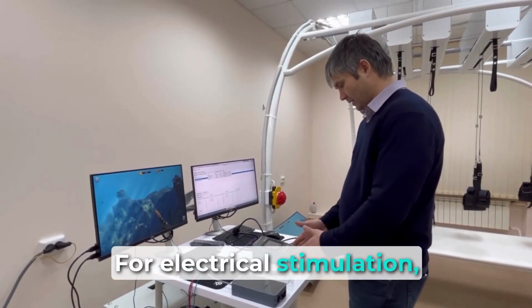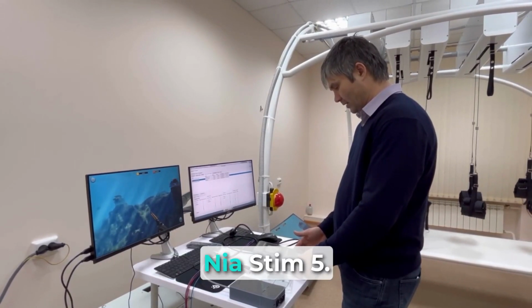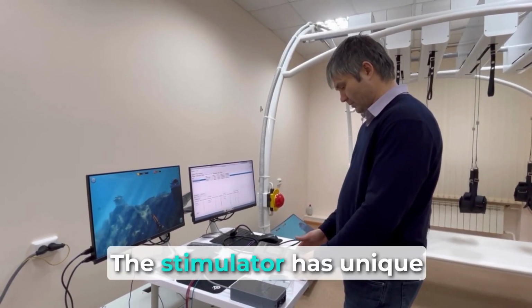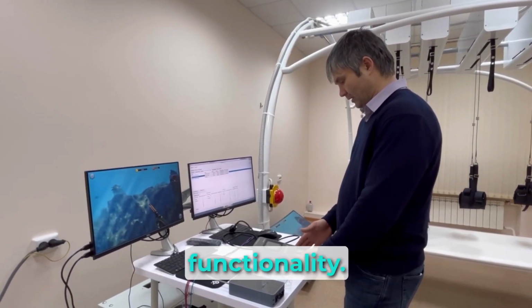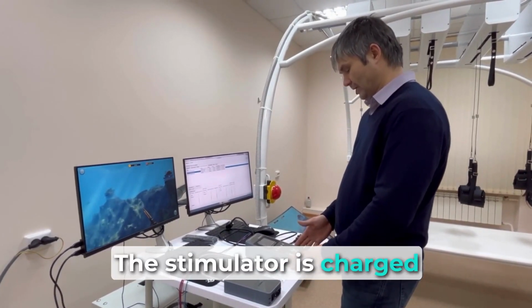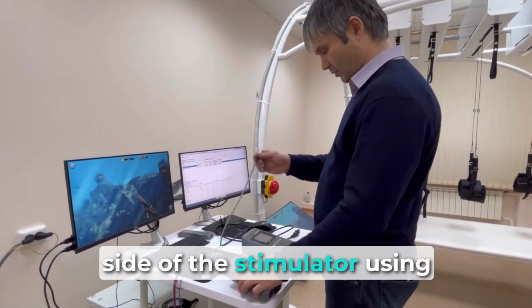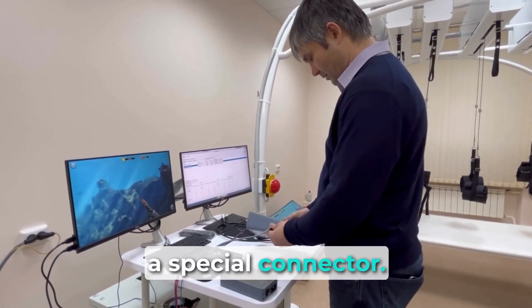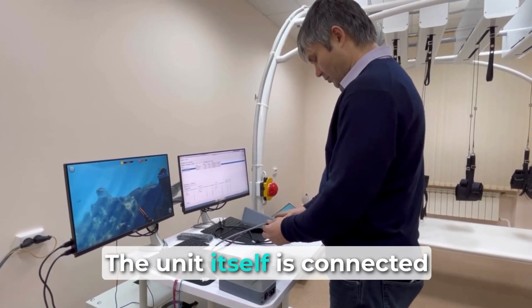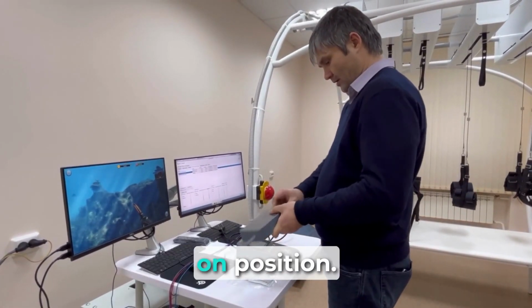For electrical stimulation, we use an electrical stimulator from the Cosima company, NIA Stim 5. The stimulator has unique characteristics and wide functionality. The stimulator is charged through a special charging unit. The unit is connected to the side of the stimulator using a special connector. The unit itself is connected to a 220-volt power outlet. The switch is in the on position.